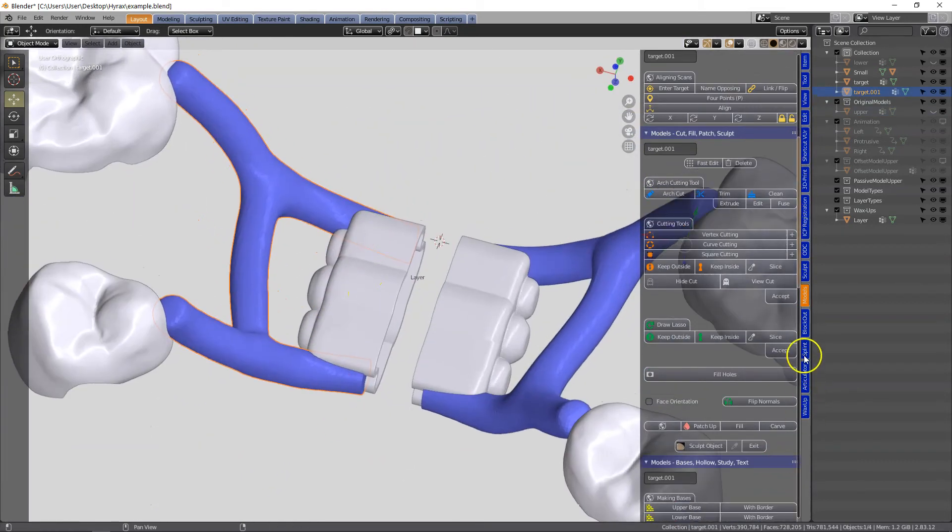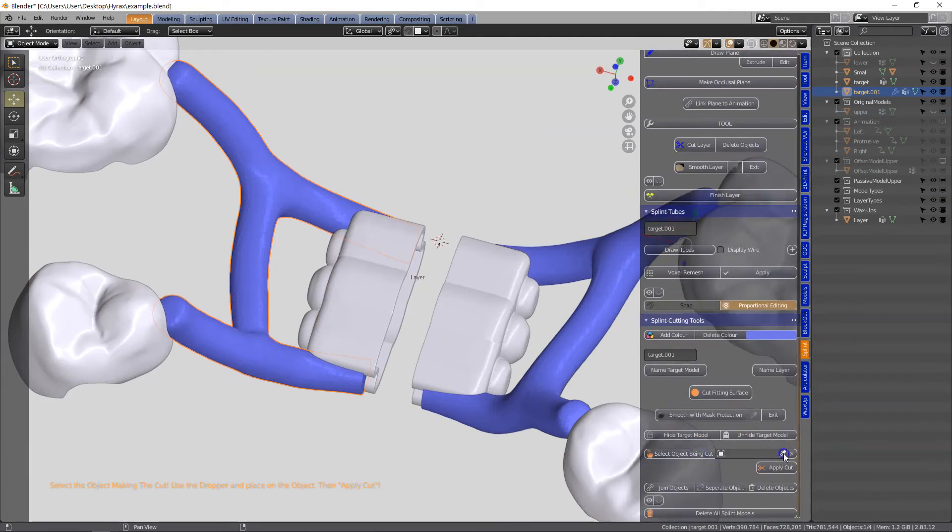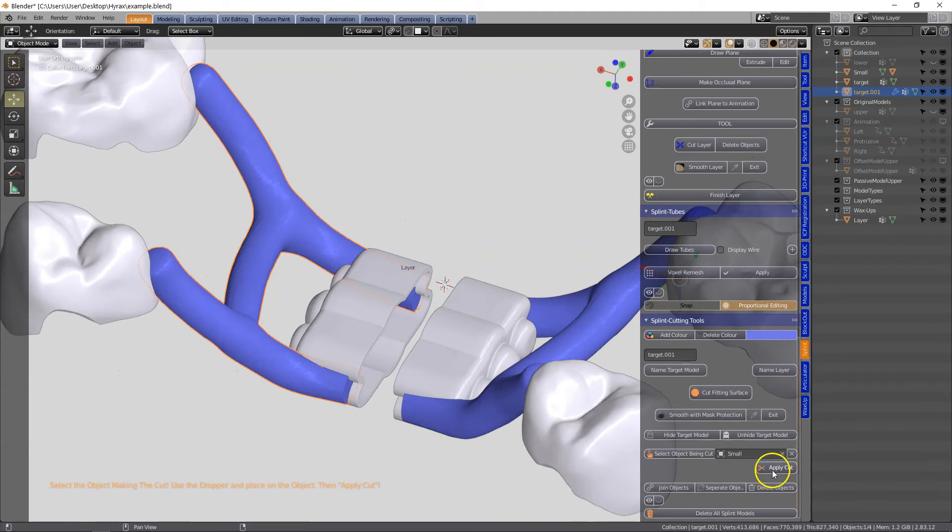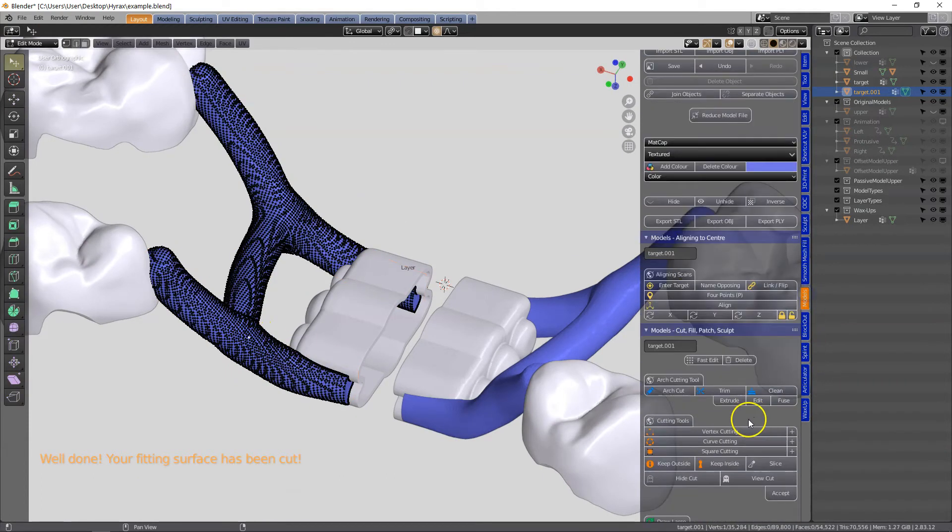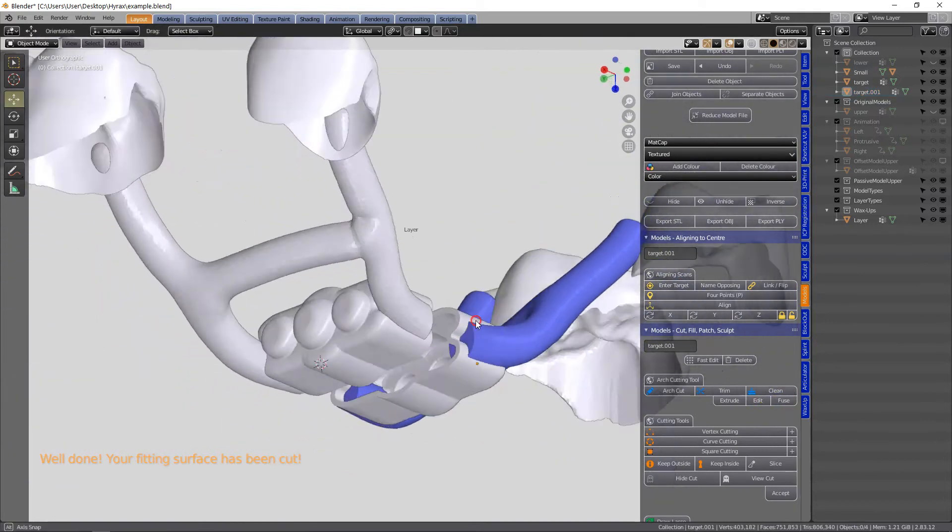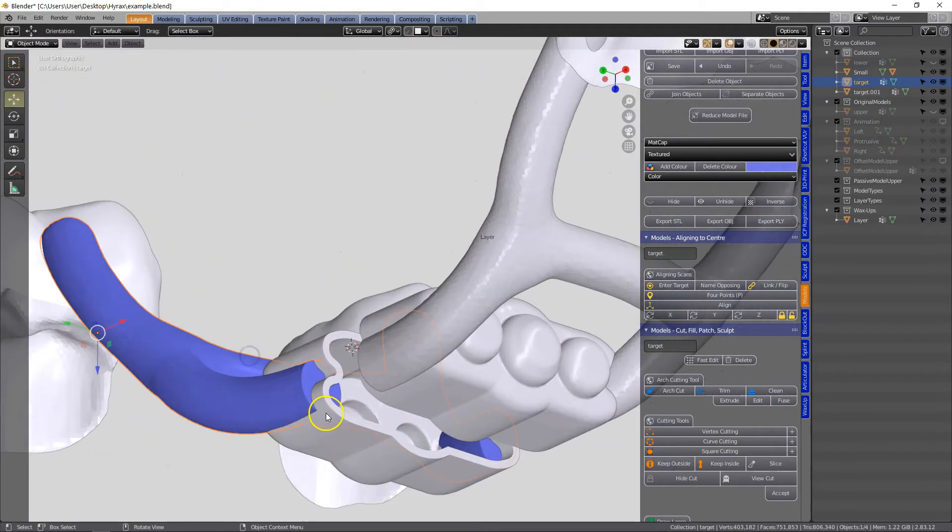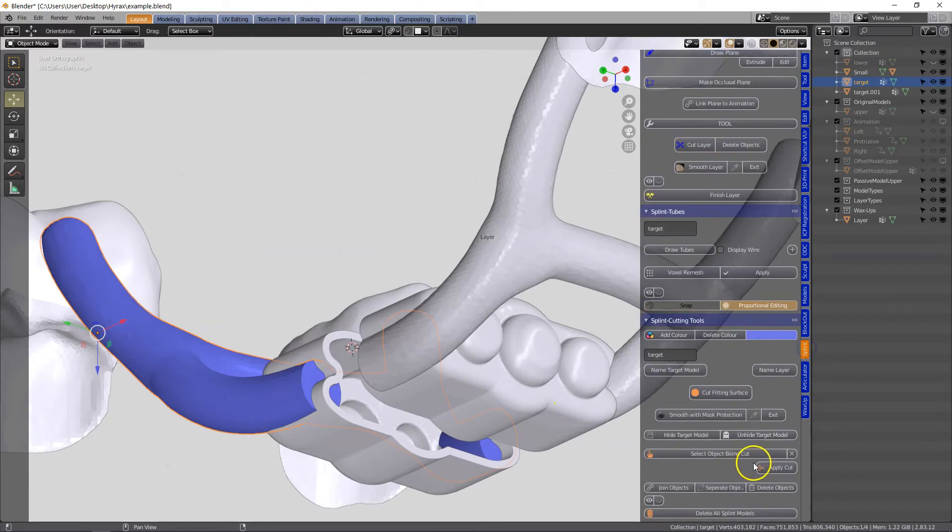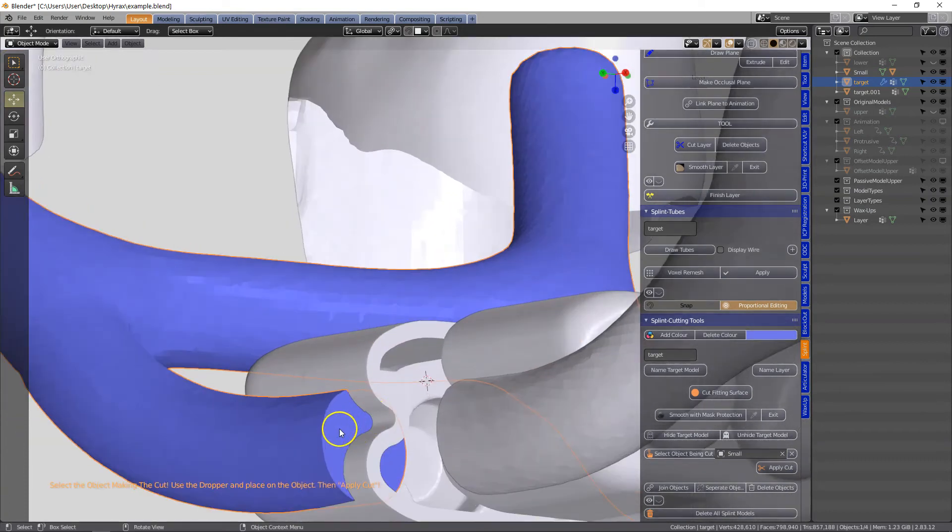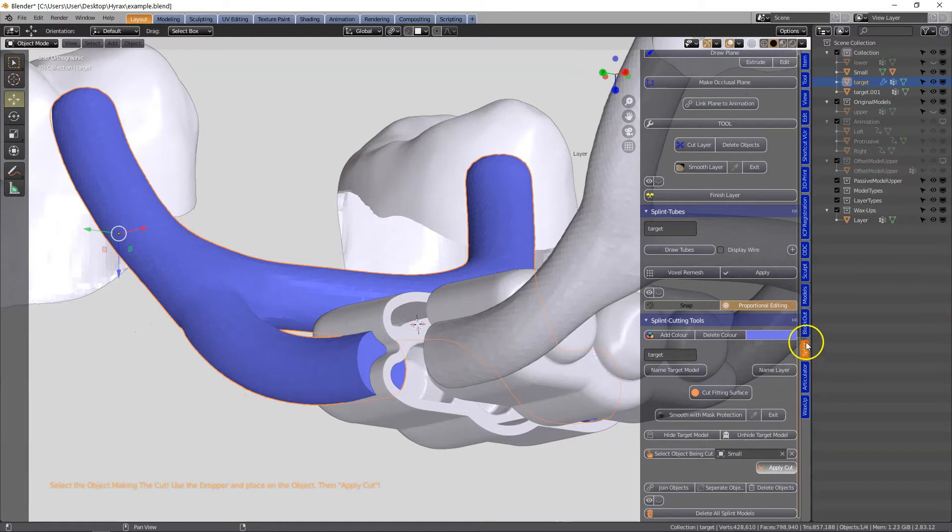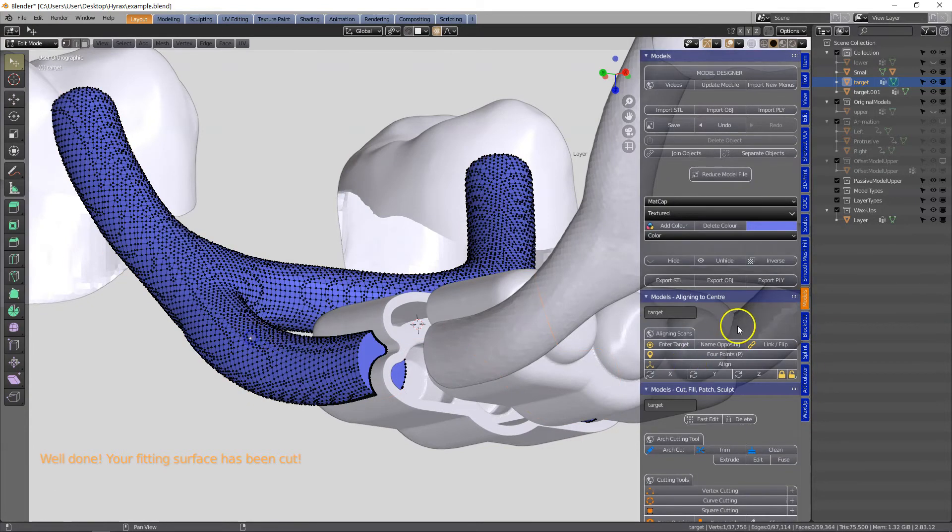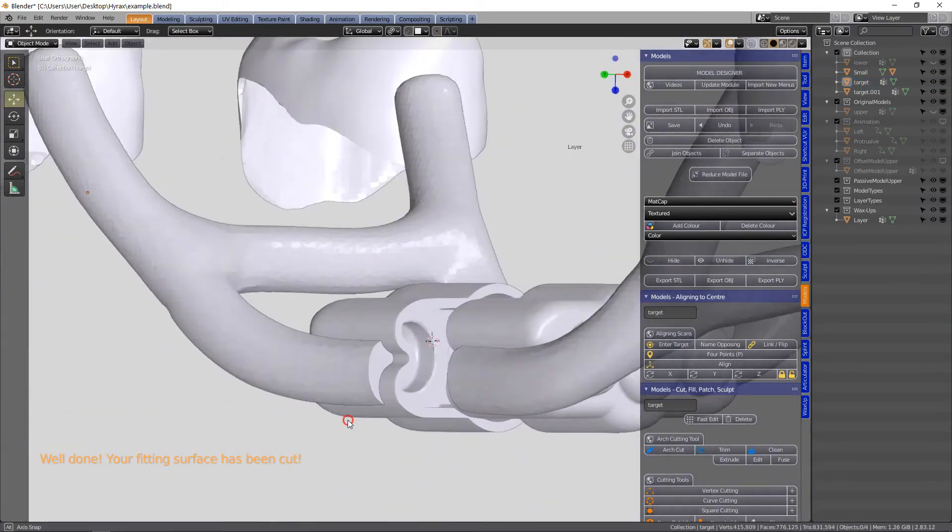Then I'm going to use the housing to cut away the inside. Note also that it extends into our tooth so we need to deal with this. I'm going to select the blue tube that's the object being cut and I'm going to be using the housing itself to make the cut. That will cut a section and in the model designer in edit mode we're going to click on one vertice and then click on the clean button. Let's do exactly the same thing on the other side.